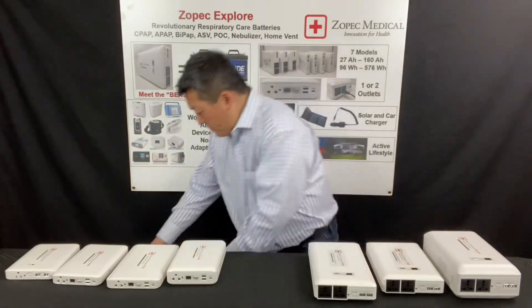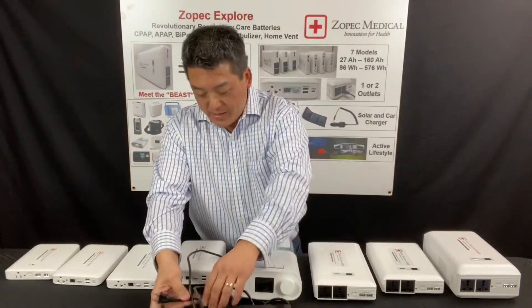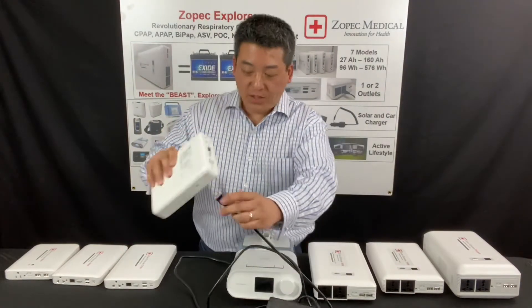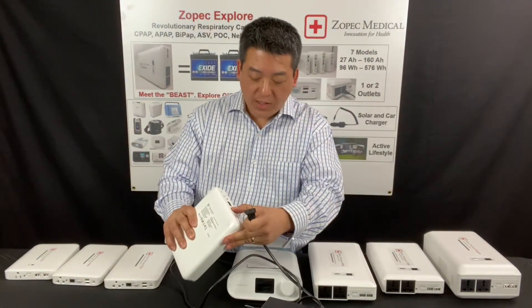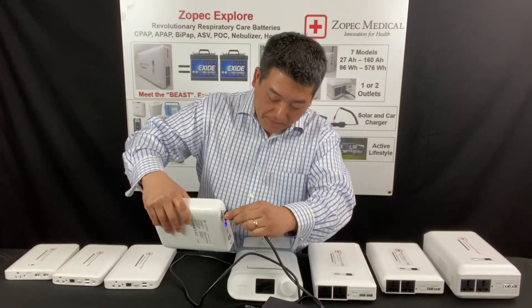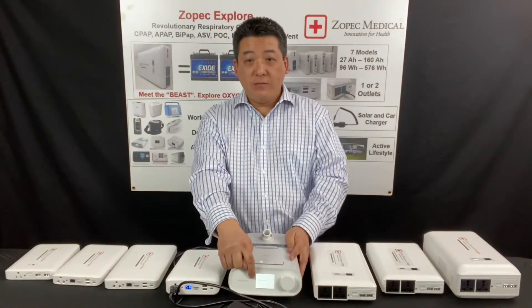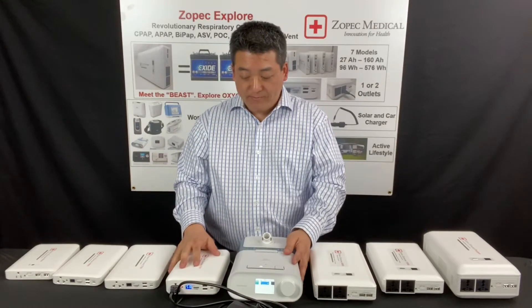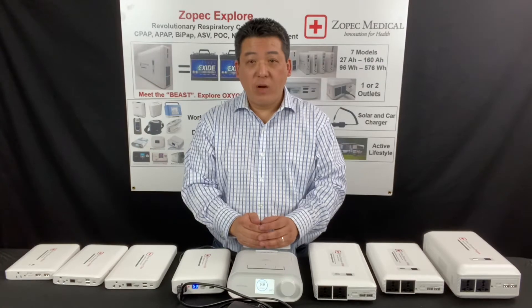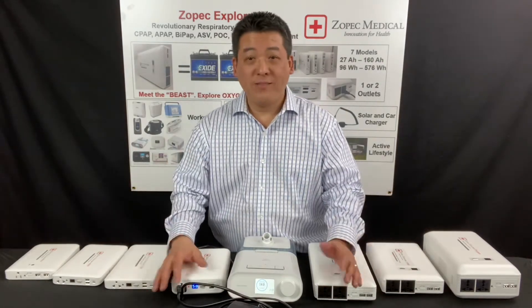Now let's do a demo. I have a DreamStation here, and I'm going to use the portable series 8200. All you have to do is turn on the battery and plug it in. You can see that the DreamStation turns on — very simple. All I did is plug it in and you can see the CPAP runs. It's that simple. No adapters, just plug it in.